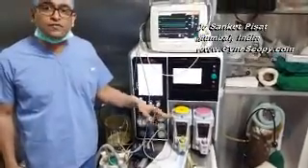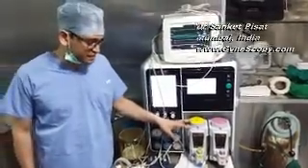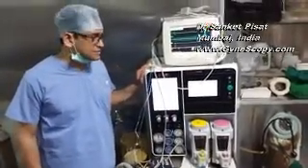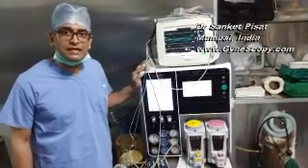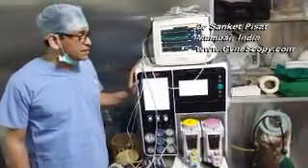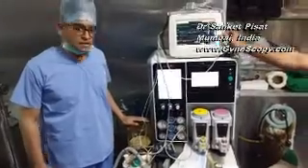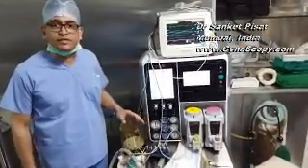So when you come in, of course, the anesthetist will do the checking, but just confirm with the OT in charge sister that these gases or whatever are required for general anesthesia are adequate in quantity. Check that central oxygen supply is connected and check that you have a spare oxygen cylinder just in case you require it. Of course, it would be ideal to have an inbuilt ventilator setup so that it makes the surgery much safer, and the other equipment for a difficult intubation.